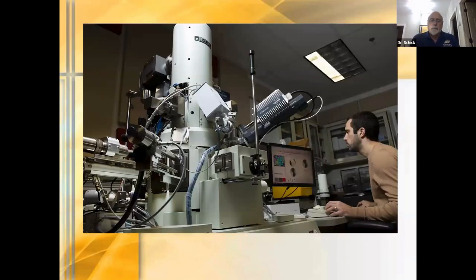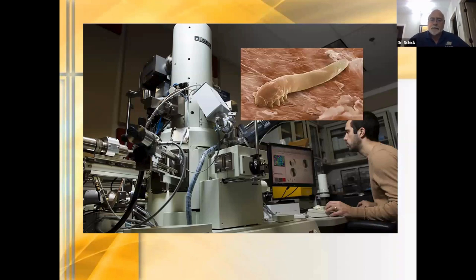I got involved with Zomedica through a friend, Bill Campbell, an engineer who started working on digital microscopy after a long career in the radiology field. He suggested I could be his beta test. The first scope he brought was a bit cumbersome. This is obviously a scanning electron microscope. For those who wanted to know what a Demodex mite looks like up close and personal — that's what they look like. They're actually pretty cute if you think about it.